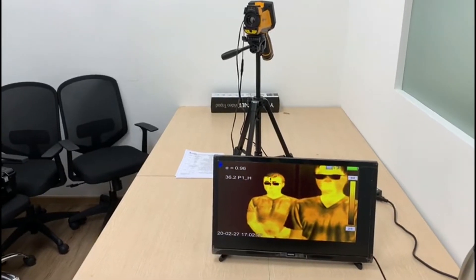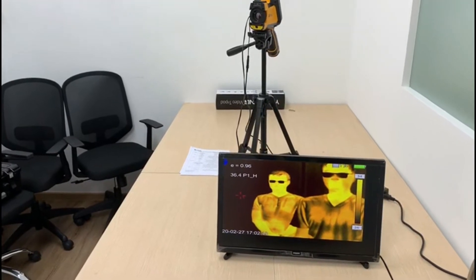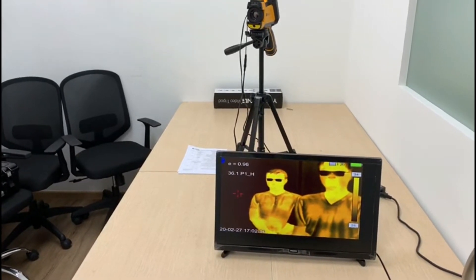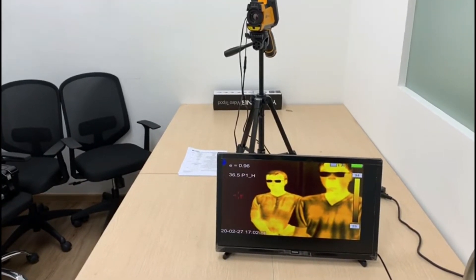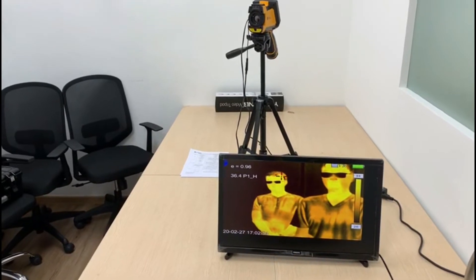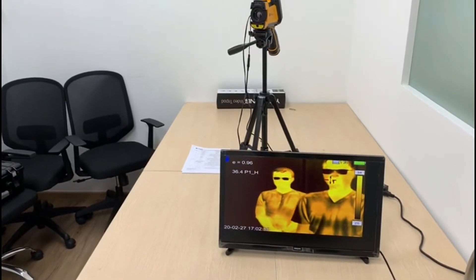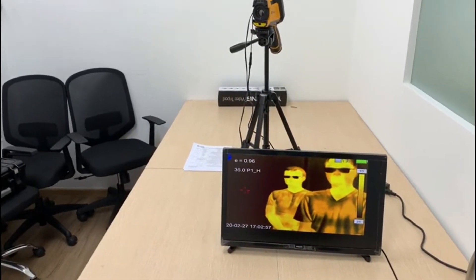Right now we have people with normal temperature in the range of the camera. As long as the target audience is in the field of the camera shown on the monitor, they will be scanned.